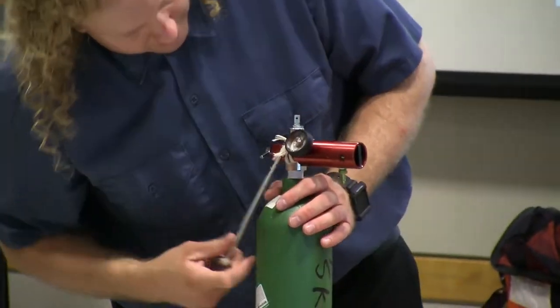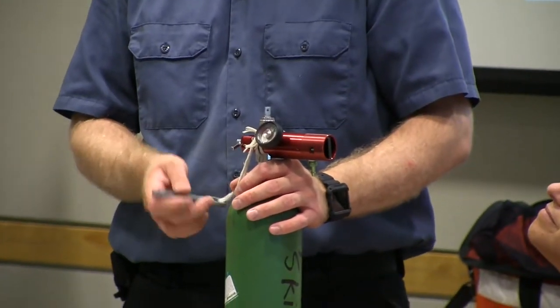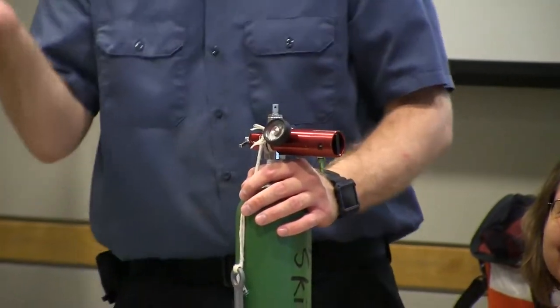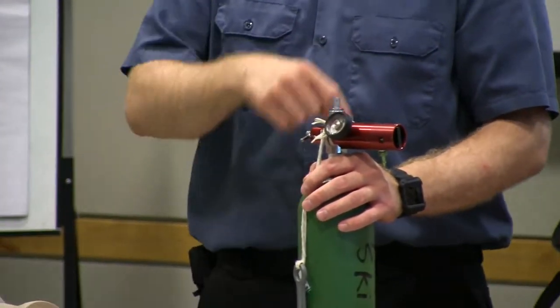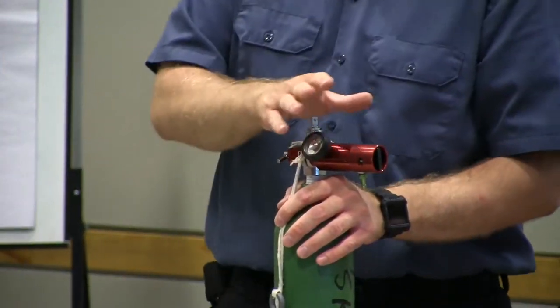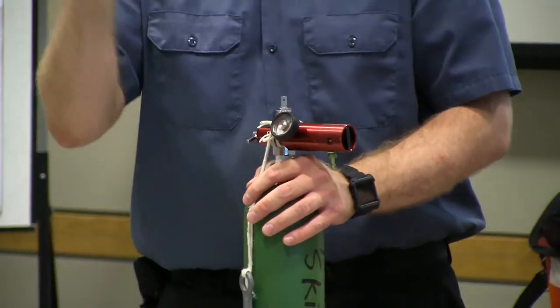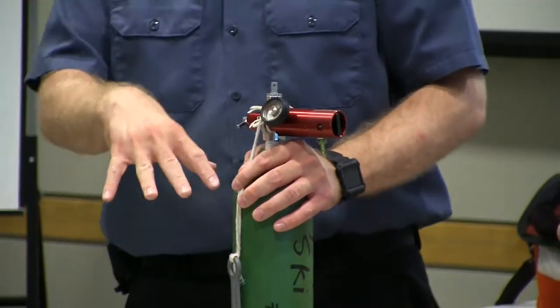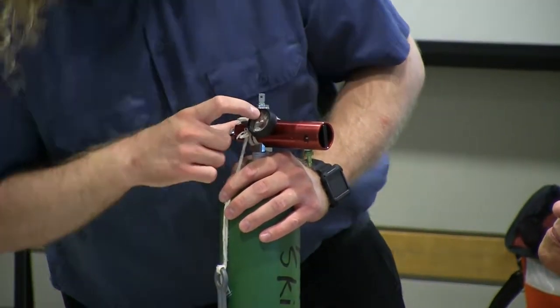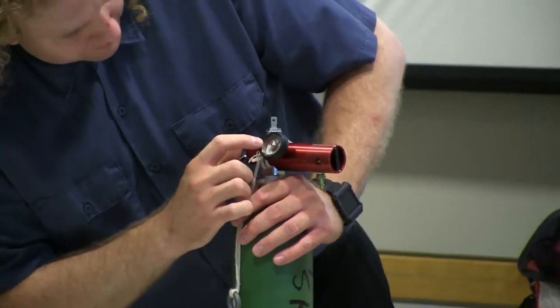We're going to open this up — counterclockwise to open, clockwise to close. I can never remember which is which, so I just kind of try until it opens. Make sure it's counterclockwise open and you should see that gauge go up. We're making sure we're securing this at all times — no Mythbusters today. Looks like I have 1200 PSI of oxygen, so I have plenty.